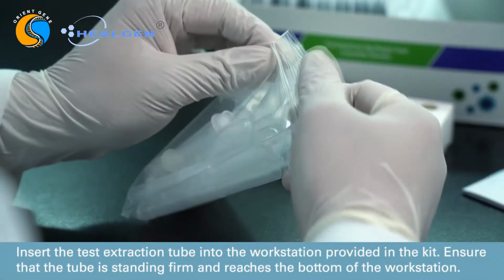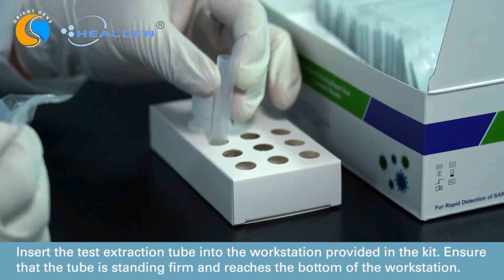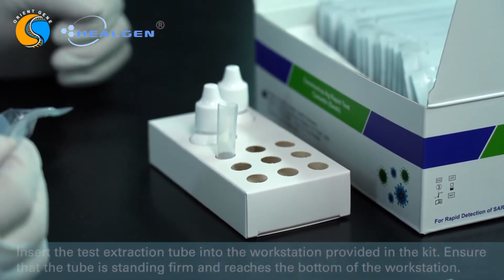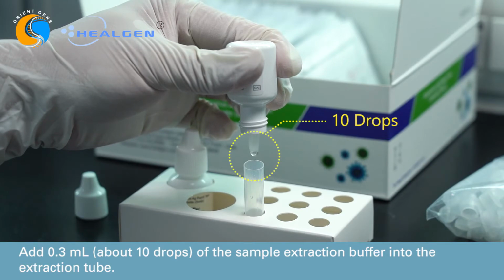Insert the test extraction tube into the workstation provided in the kit. Ensure that the tube is standing firm and reaches the bottom of the workstation. Add 0.3 milliliters, about 10 drops, of the extraction buffer into the extraction tube.